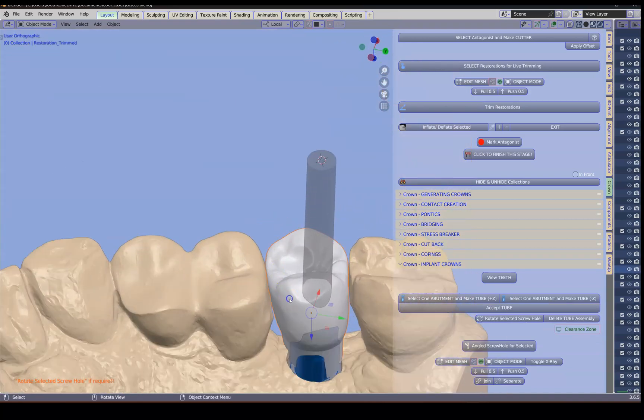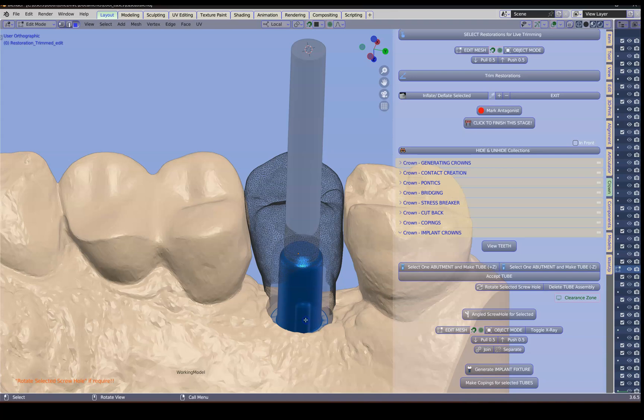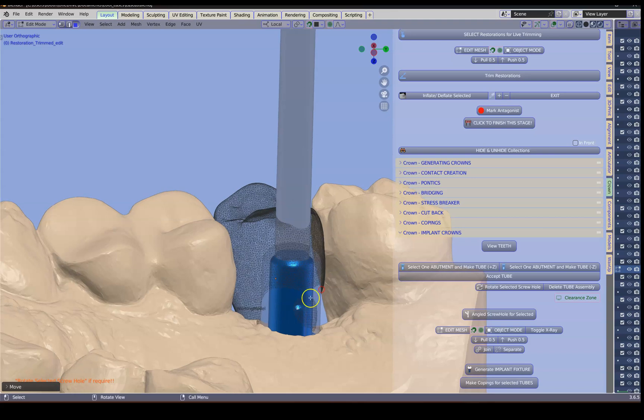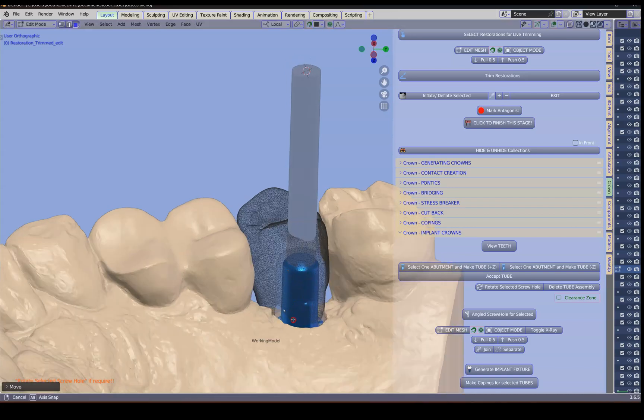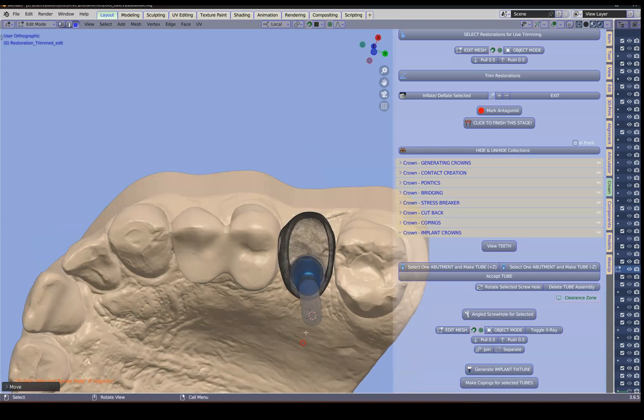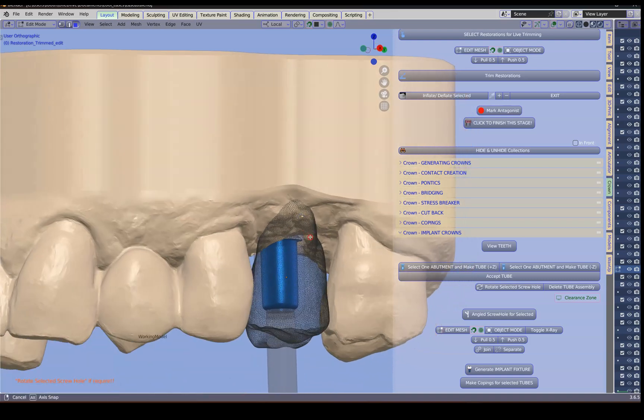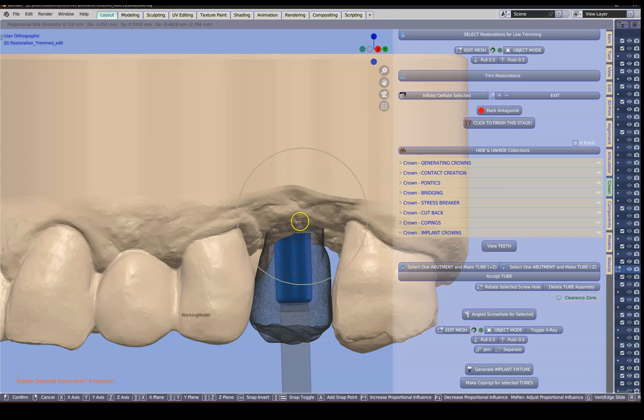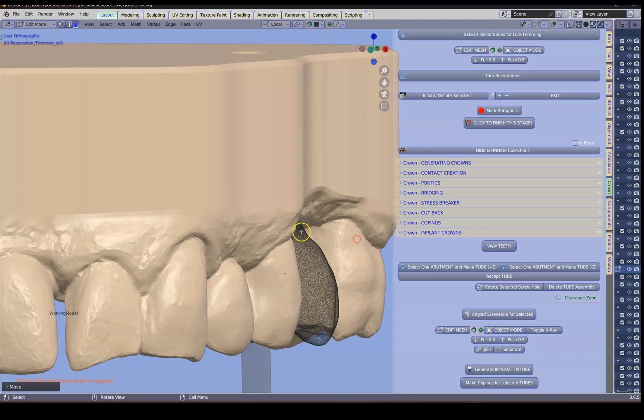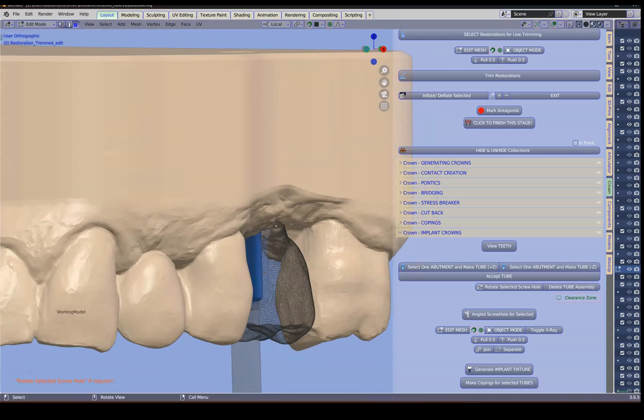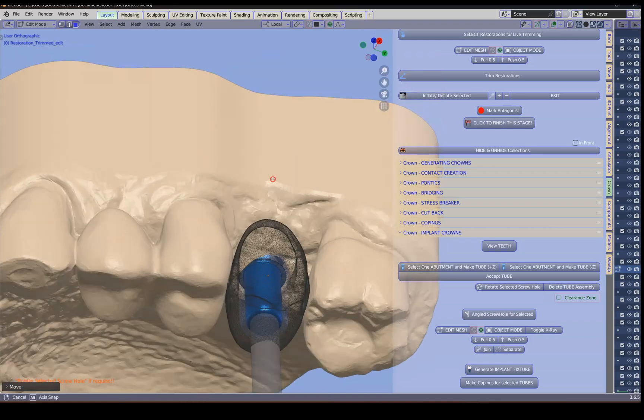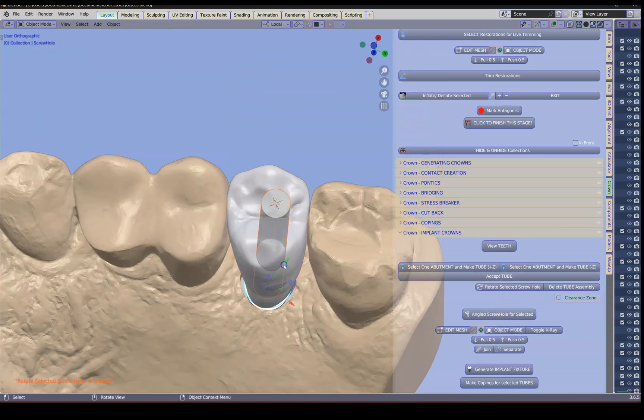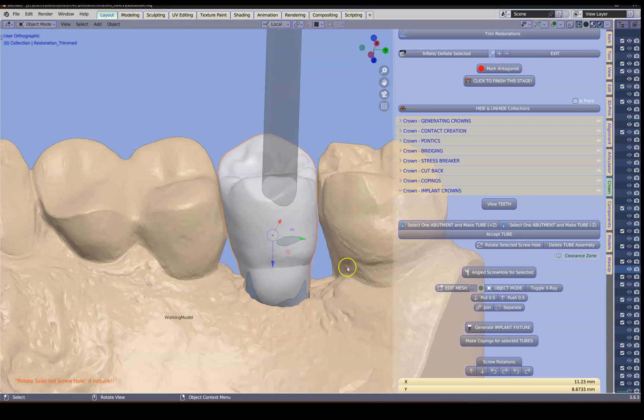I'm going to select my tooth. I'm going to go into edit mode. And I'm going to bring this tooth out just a little bit. So essentially I'm gluing it onto this part over here that it is thick enough. Also I see there's a huge overlap over here. Like a ridge lap. I don't really want that. I'm going to move this inwards a little bit. So this is a very powerful tool that we have in blender. Because we can manipulate the mesh very easily.